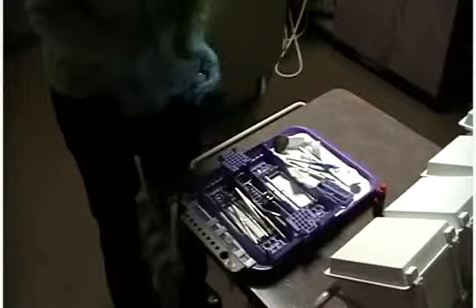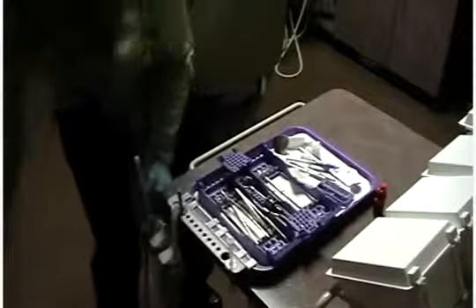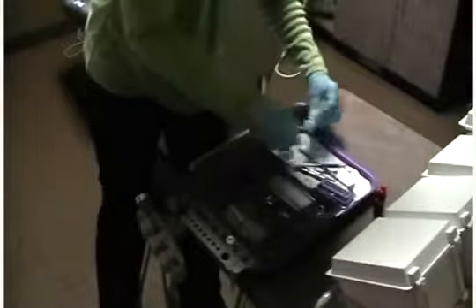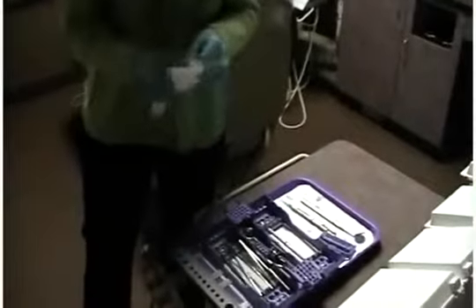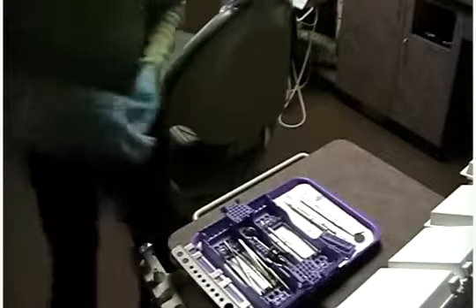The procedure is complete, and now it is time to break down your setup. Dispose of all consumable materials at chairside, such as the saliva ejector, cotton rolls, needles, and any other single-use items. By disposing of these items now, it will save time in central sterilization when the cleaning process is ready to begin, and it also helps prevent potential injuries that may occur during transportation or sterilization.